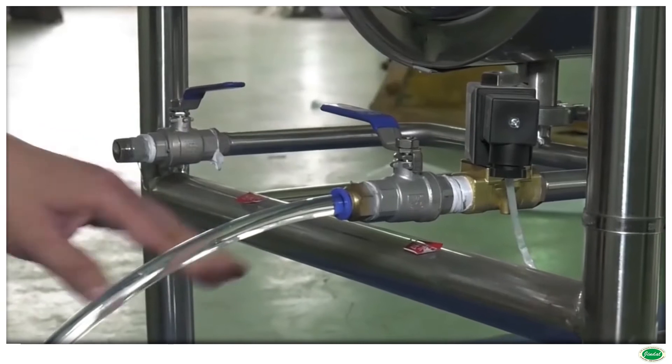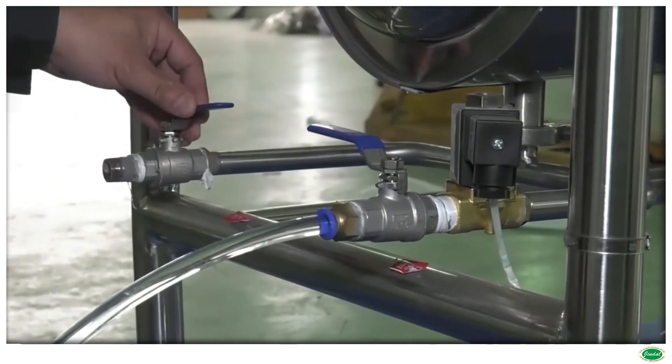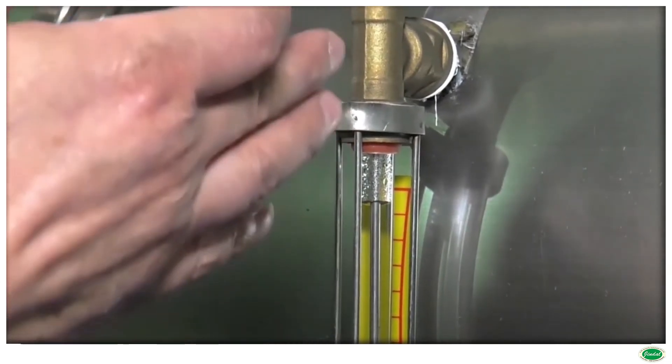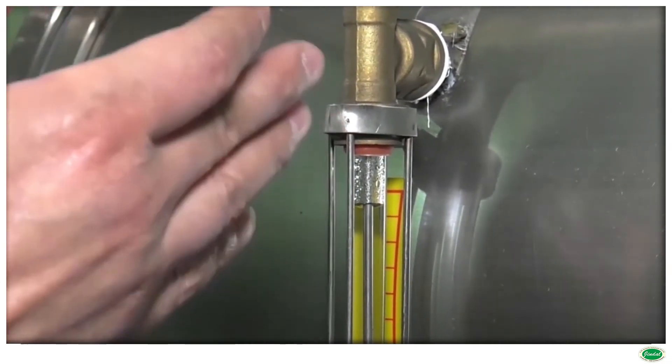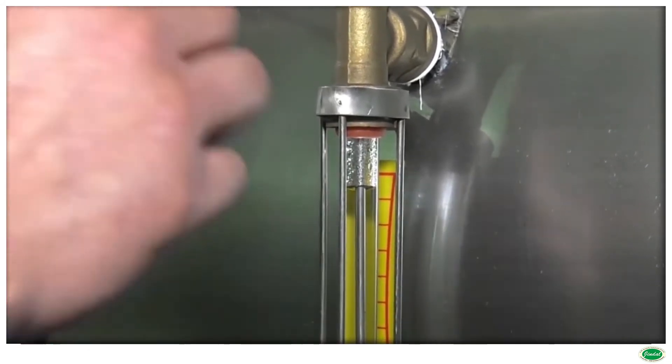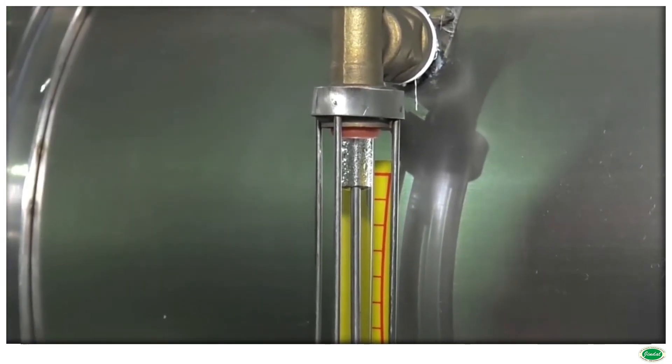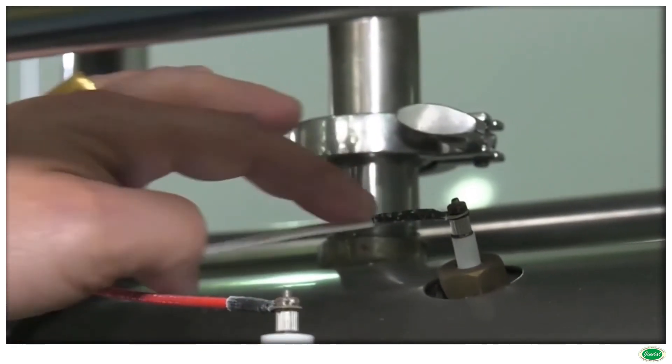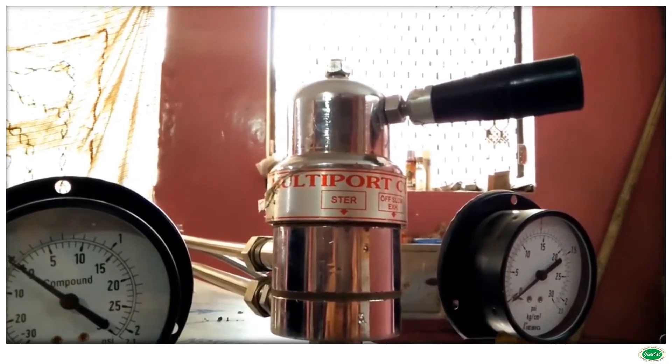The sterilizer is triple-walled with steam jacket and separate boiler. The inner chamber and steam jacket are made of heavy-gauge stainless steel sheet with leak-proof argon welding. The sterilizer has single-piece door made of stainless steel plate. Back plate and ring are also made of thick stainless steel. All sterilizers are hydraulically tested to withstand 2.5 times the working pressure.